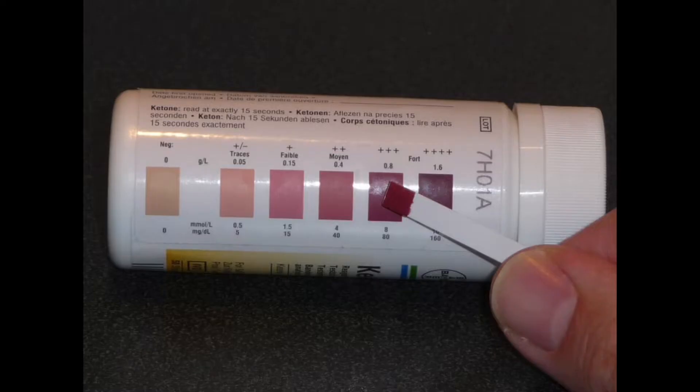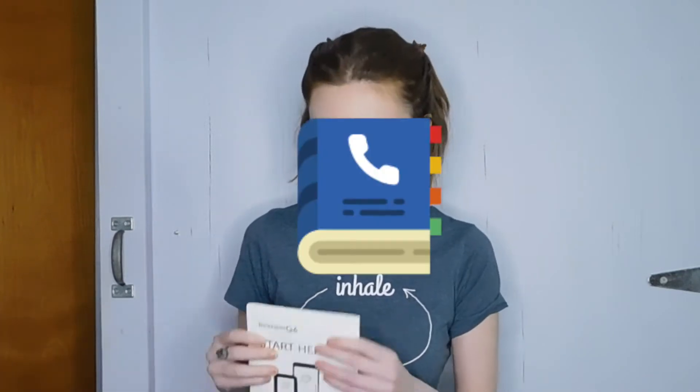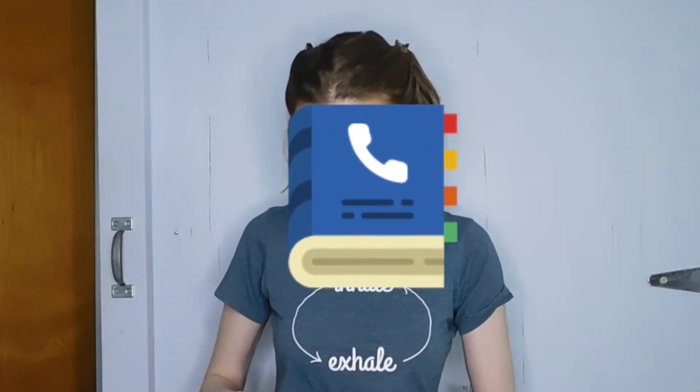You're not supposed to have them. My last receiver was a lot smaller than this. I feel like it was half the size, and it was pink, and this one's black, and I'm not okay with that. Start here. It's like a phone book. Why is it this complicated?